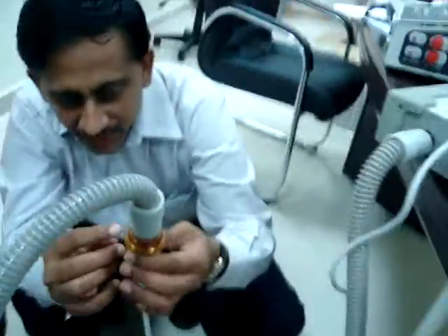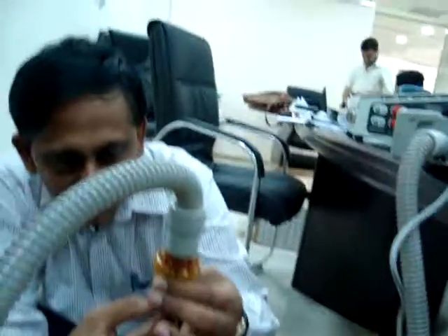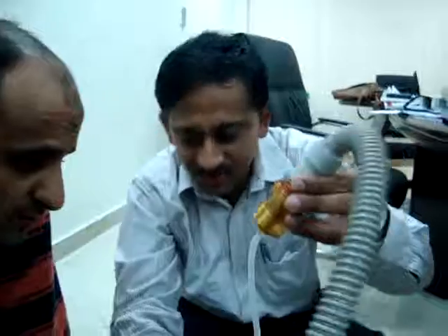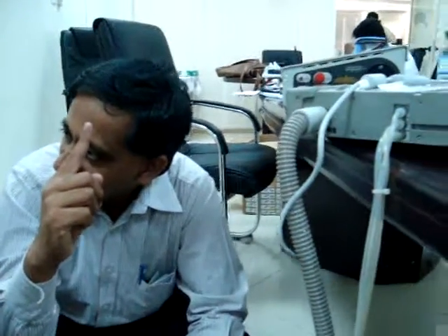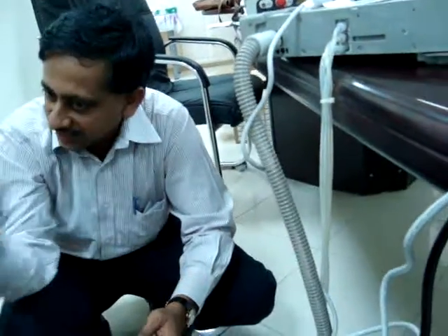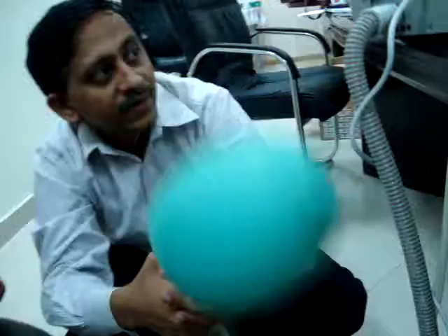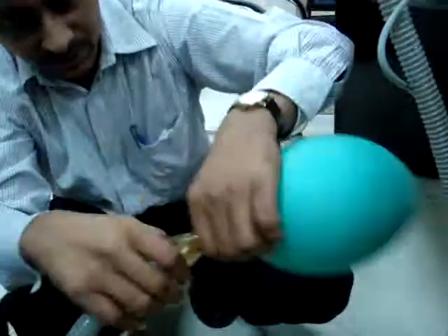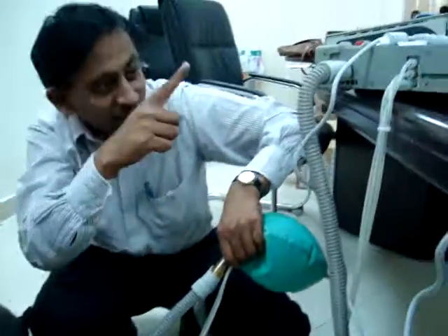When the spring is moving, there is another action you can see. That flow of gas is given to the machine, whether the patient's return air is coming. If there is a detachment, the return air will tell the machine the status of the patient, whether he is able to take the breath. If I remove this one, there is no return air, and the machine will not deliver.